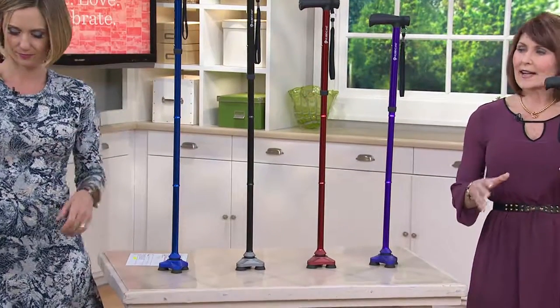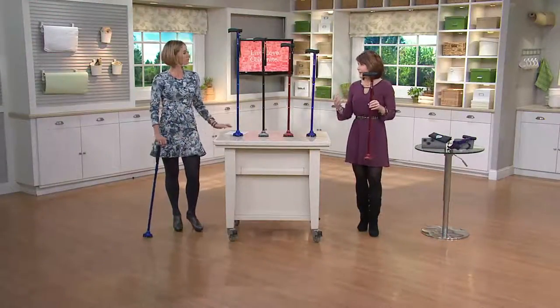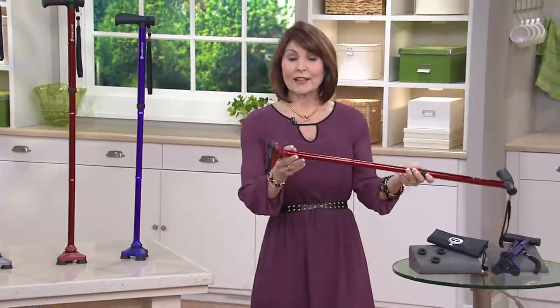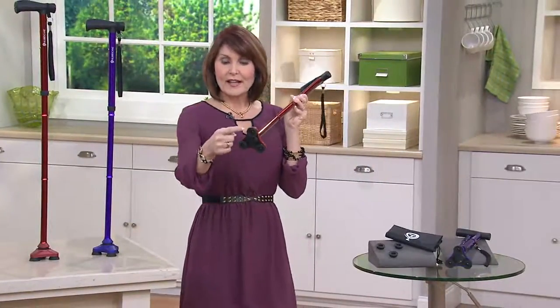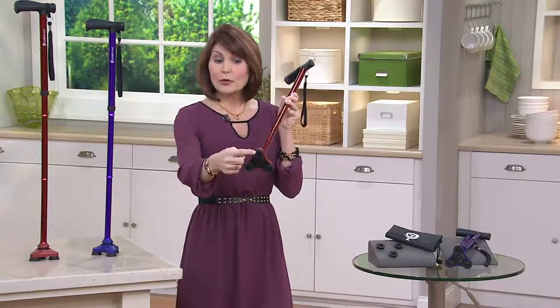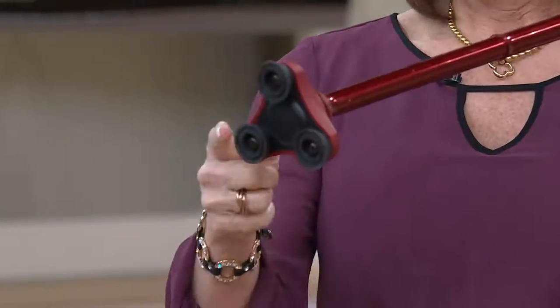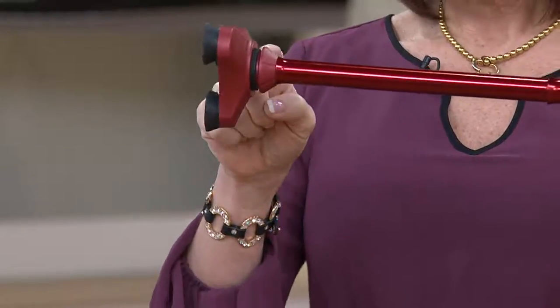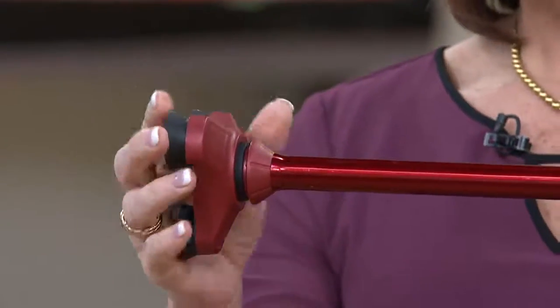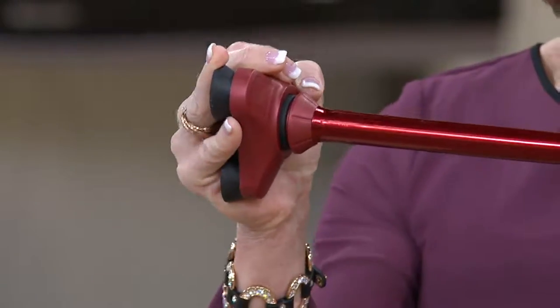They are sleek, and Hurricane set out to design not only a cane to help people, but they studied physiology, science, and the physics of how the human body works. What they came up with is the HurryCane, which has three points of focus on the bottom. Unlike most canes that just have one point, this gives you three opportunities for actually gripping when you walk, and it's almost designed like a ball and socket. This movement is very subtle and very specific — you want it to be little because you want this to fully support you.